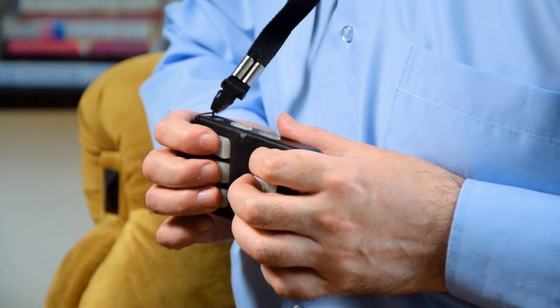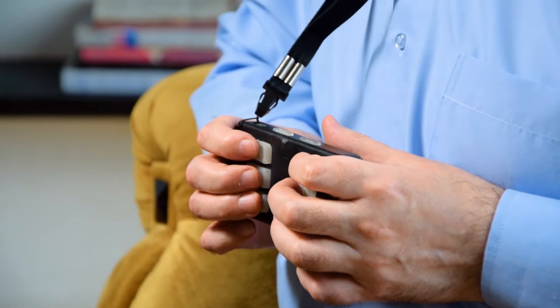With the help of these keys, a deafblind interlocutor who does not speak can type text, which will then be read by a speech synthesizer. Also, on the surface of these keys there are unique elements that through vibrations transmit the speech of the sighted interlocutor, converted into Braille.